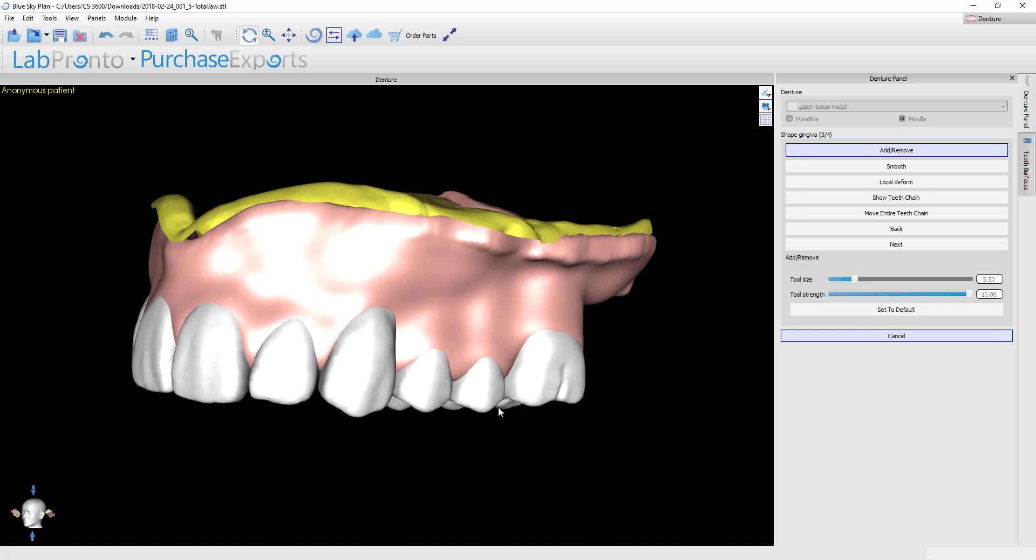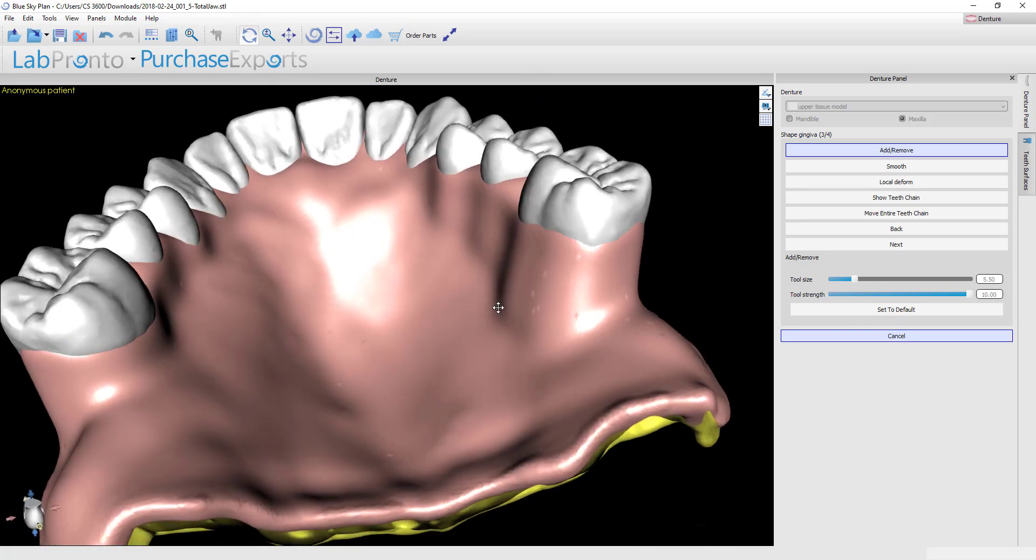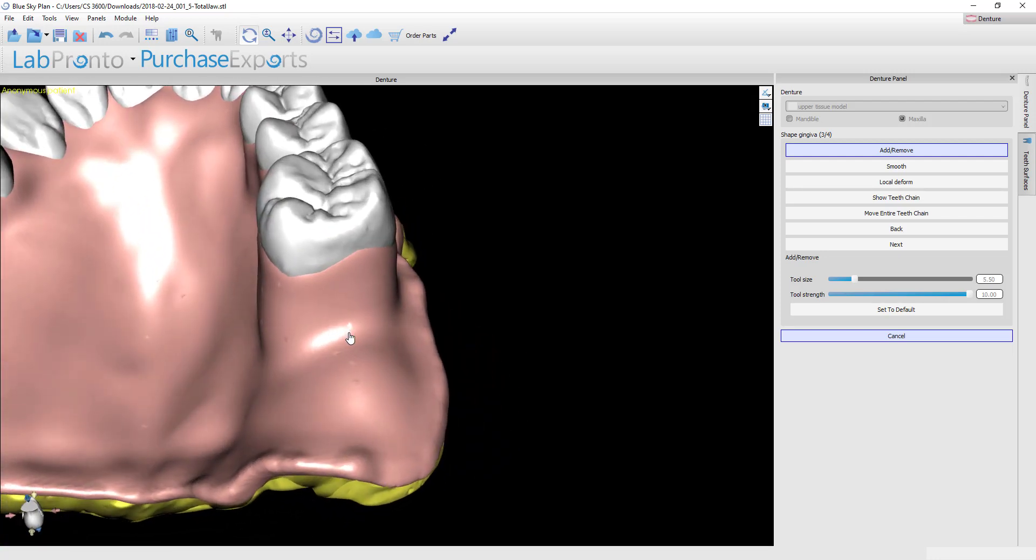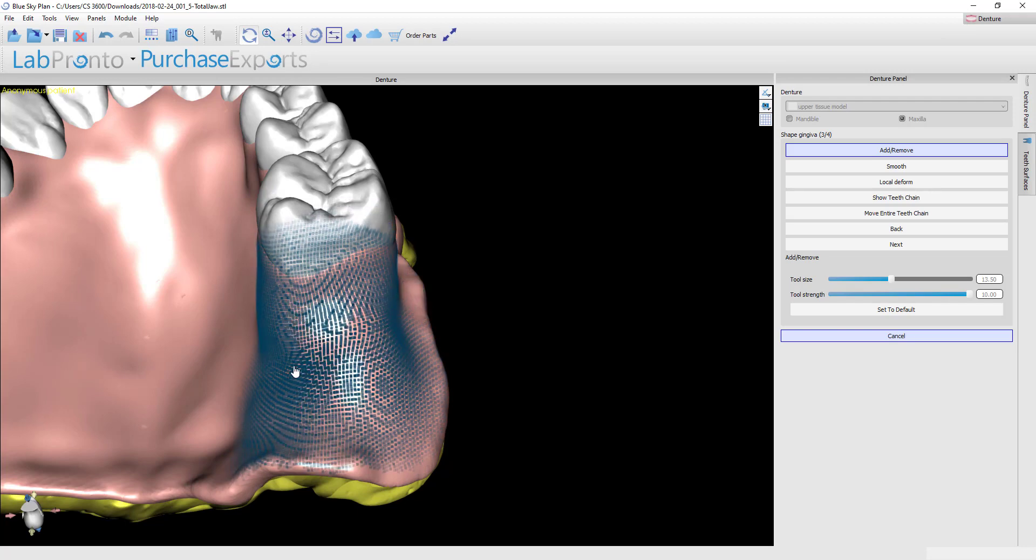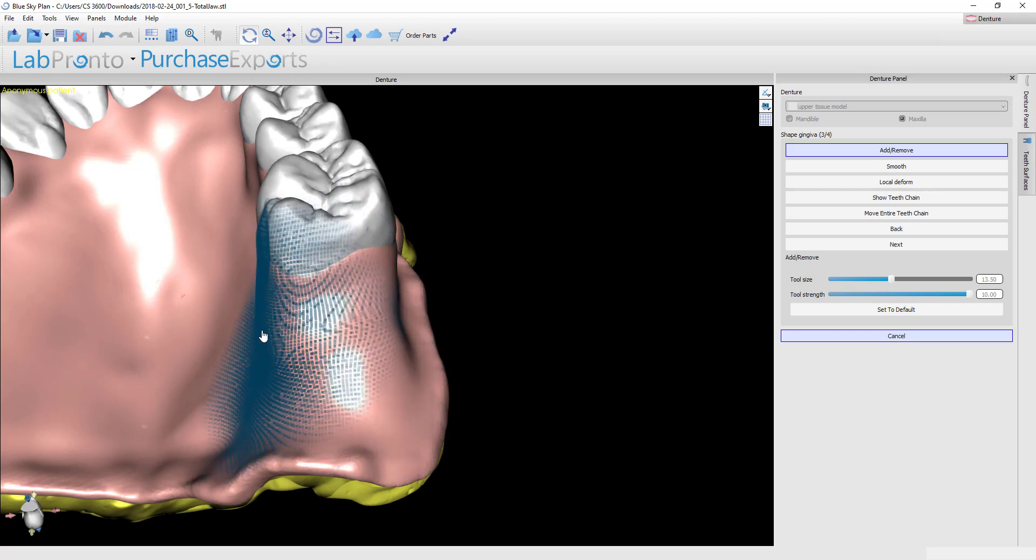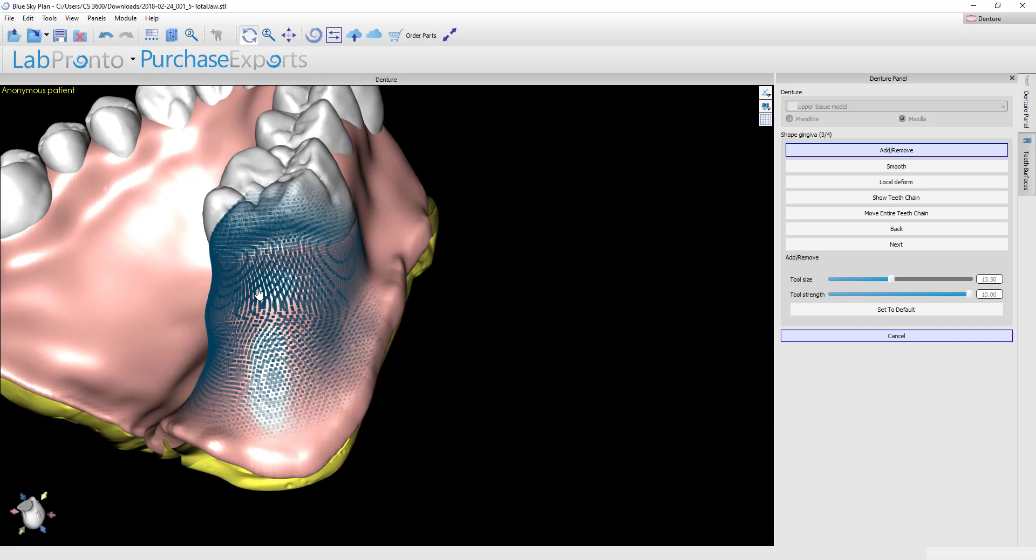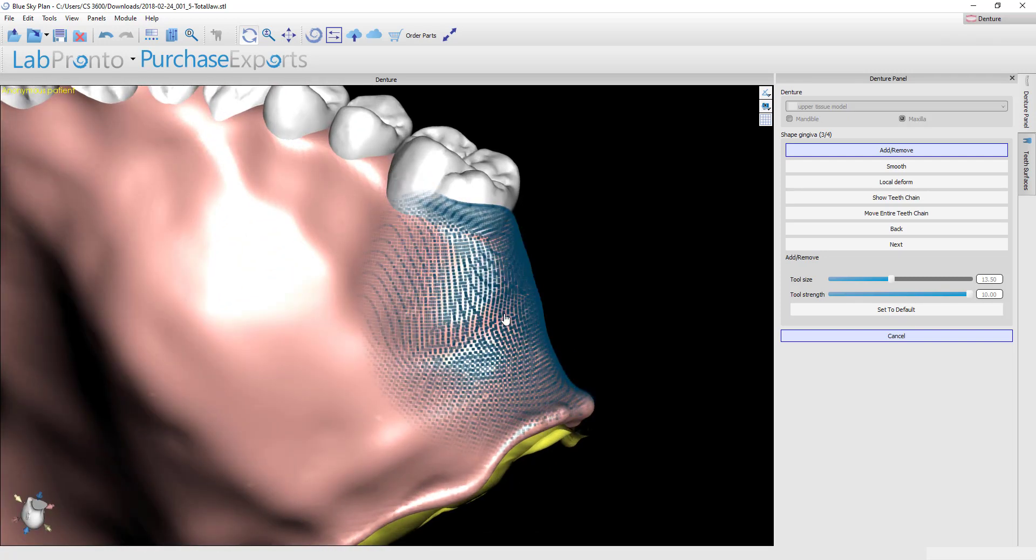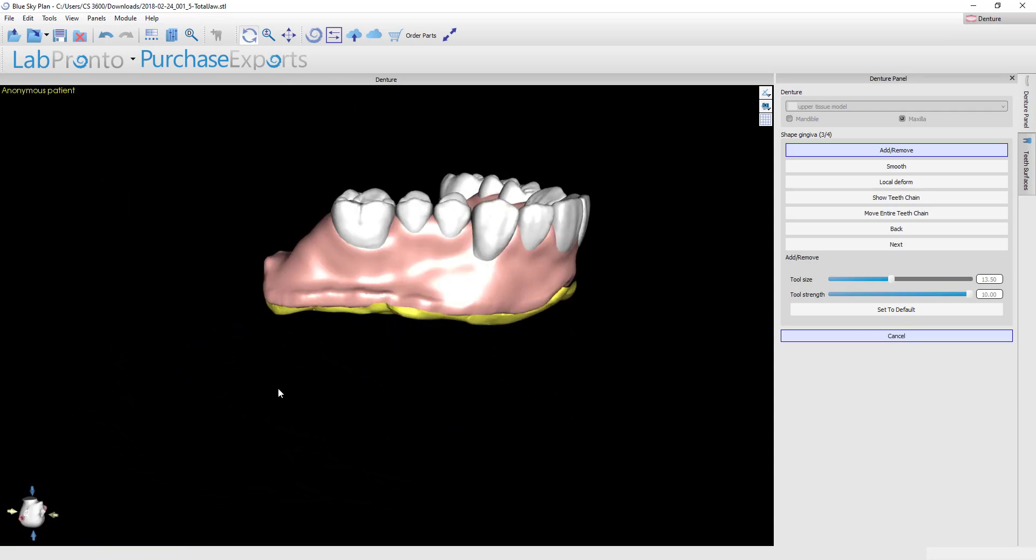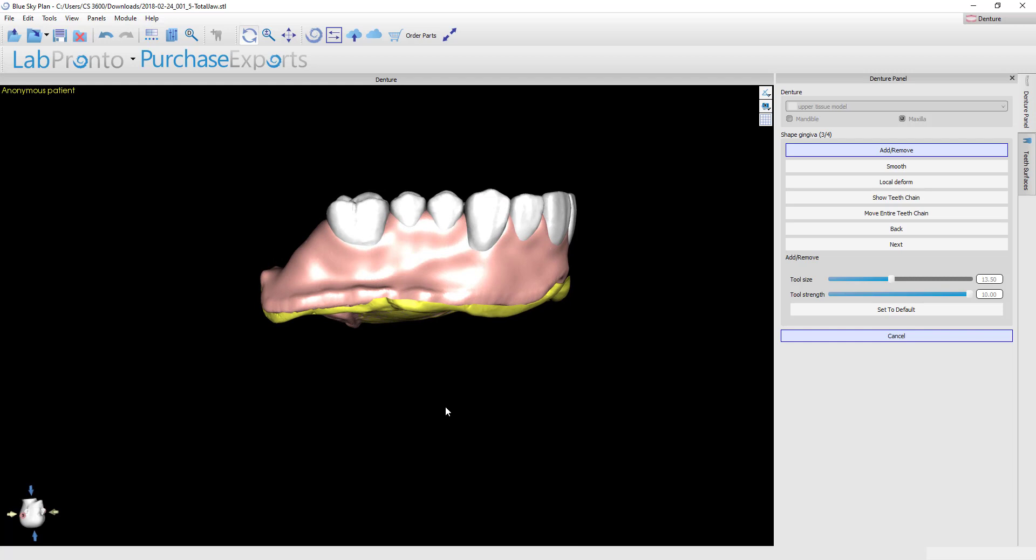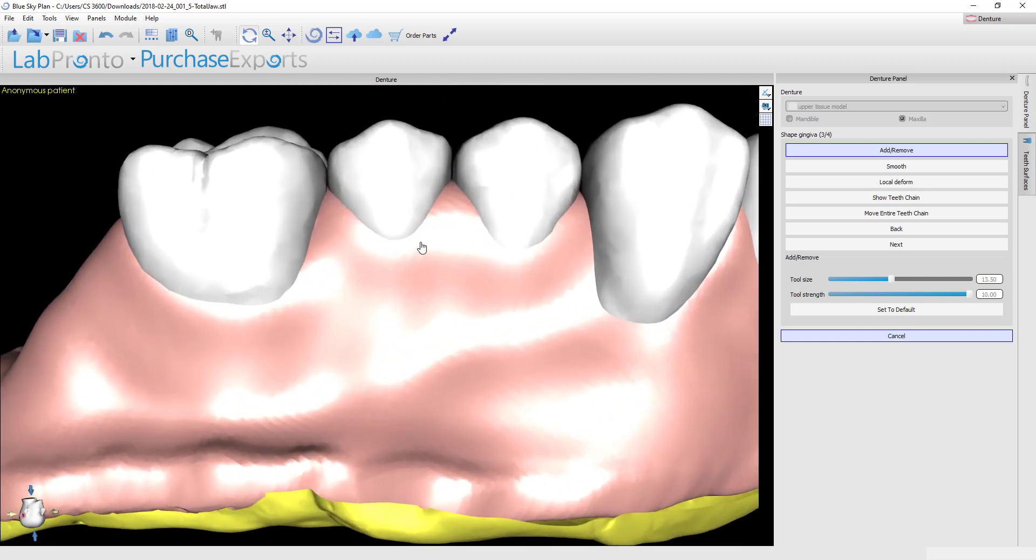So let's first go and try to add some gingiva. Let's find an area where we're deficient. I probably want to make this where it's not such an abrupt drop-off. If you hold down the shift key and then change your spot size to whatever is appropriate, then you can now just left click and you can see that I'm expanding and I'm moving around wherever I want to add that material. If you look at it from a bit more lateral view, you can see that continue to build up.